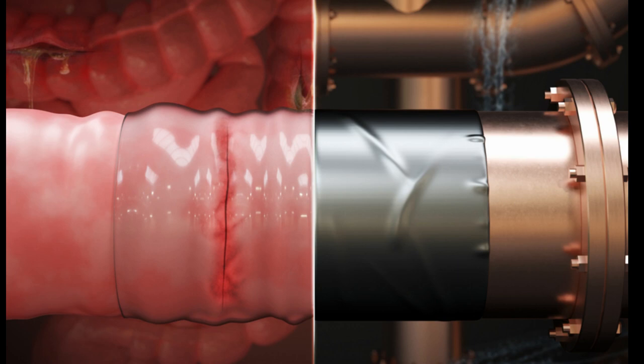Finally, they reinforced the adhesive with gelatin or chitosan, natural ingredients that kept the tape's shape. The researchers found the double-sided tape strongly bonded different tissues together.